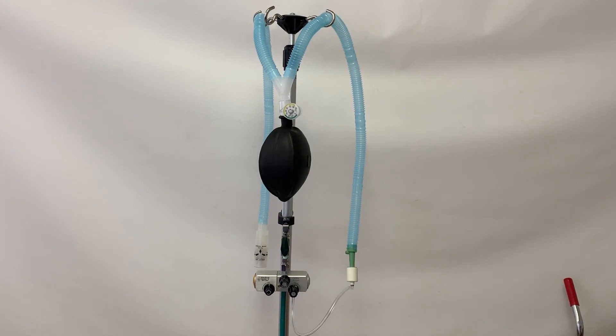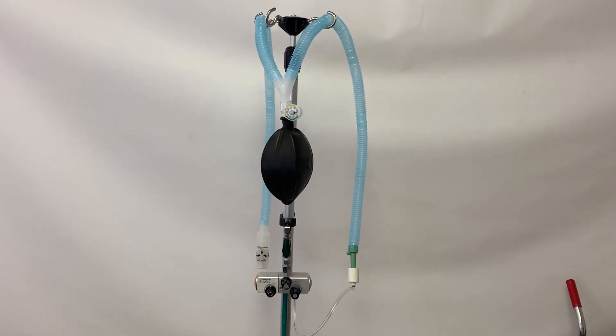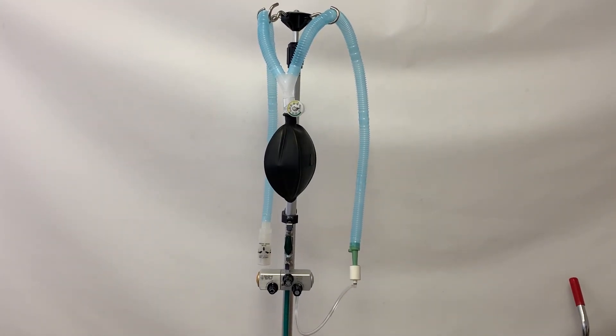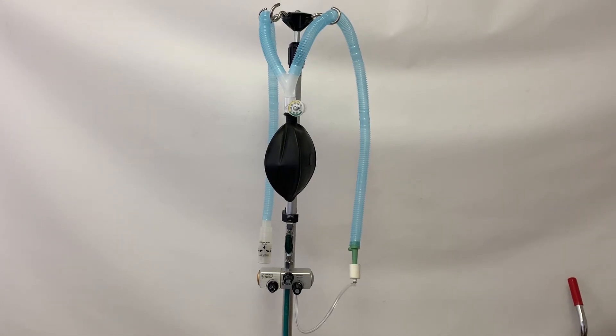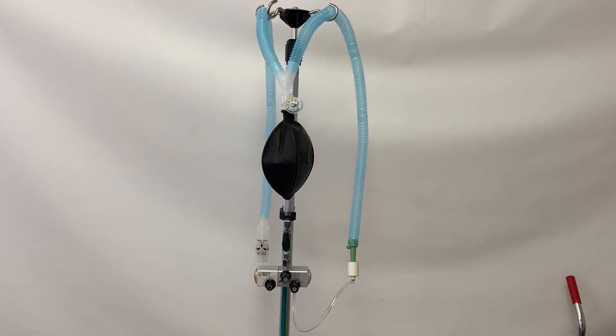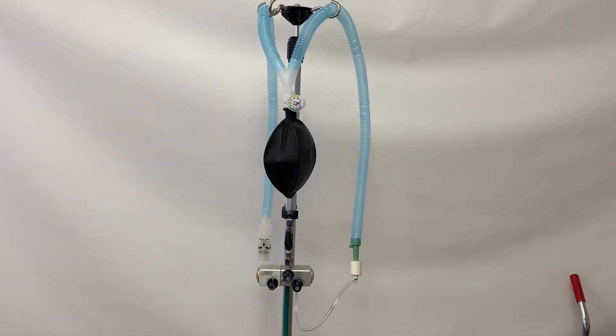The simplicity of this device makes it ideal for rapid deployment and even mass storage for stockpiling in the event of a crisis in the future. There are very few maintenance parts, and the longevity and reliability of this device are incredible.